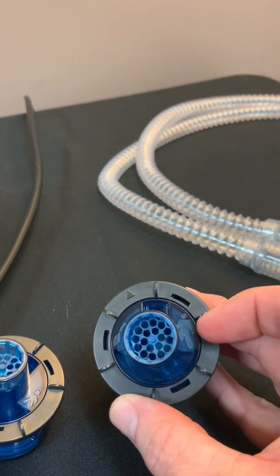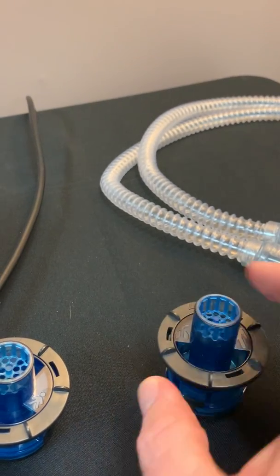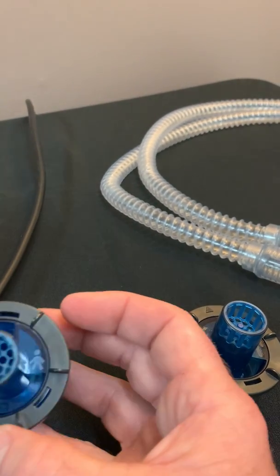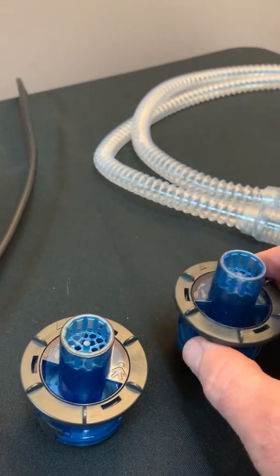Well a person, larger person on that valve as opposed to a smaller person on this valve. So this is our pediatric valve and this is our adult valve.